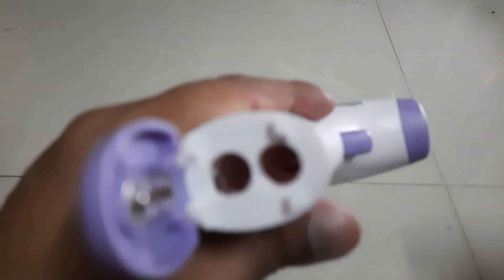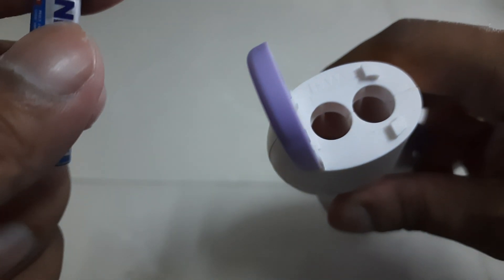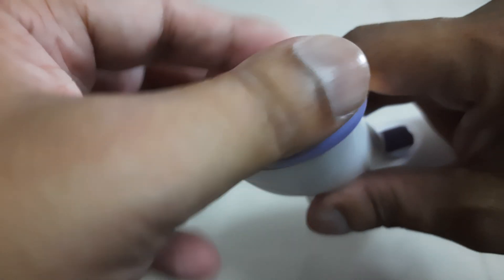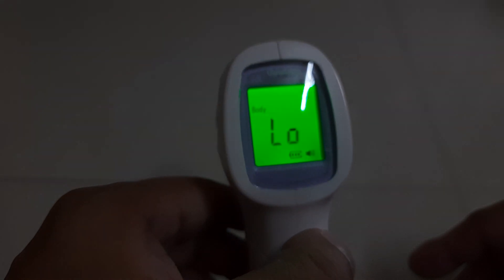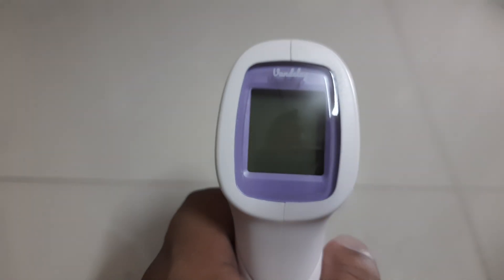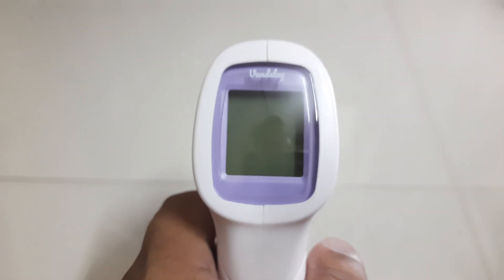All you need to do is insert the batteries. There is a plus and minus sign given on the compartment, so you insert accordingly — plus here and minus here. Once inserted, this is always activated. It has an auto switch-off feature, so you don't have to switch it off manually — once it reads the temperature it will go off automatically.